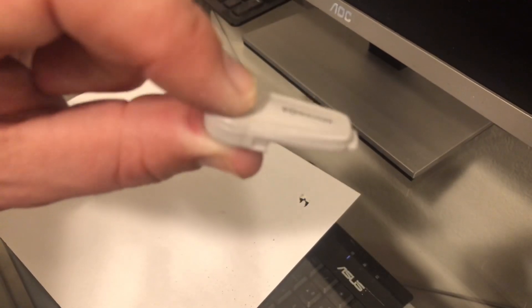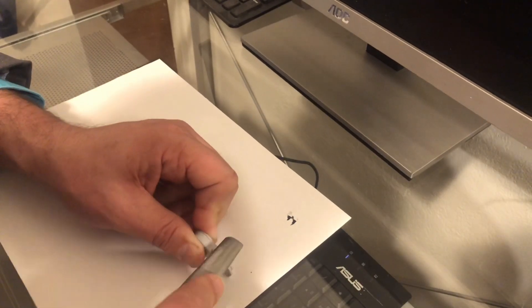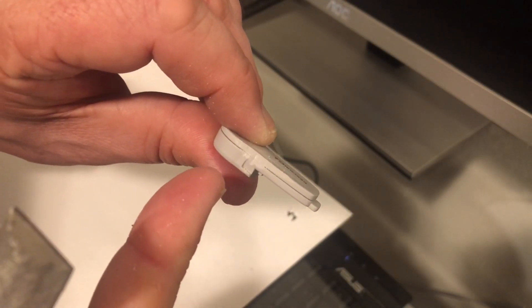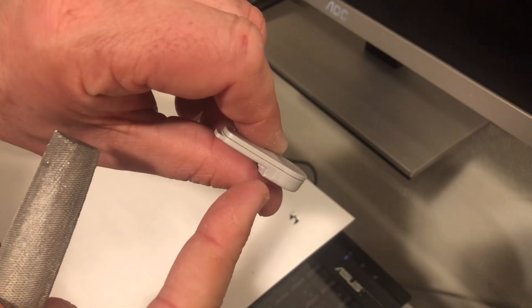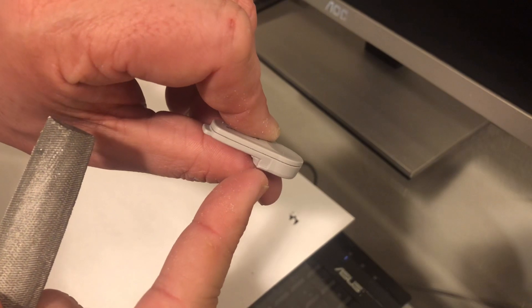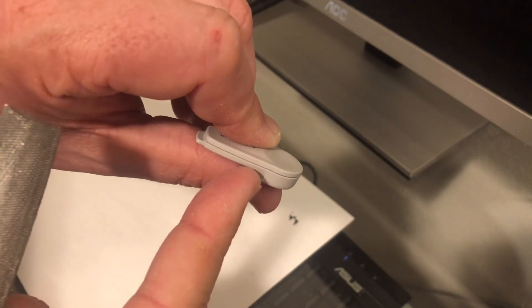See if you just barely rounded off the top there. This would be much easier with a slightly smaller file. Just notch that a little bit so that the toothpick can fit in to release that clip from the transmitter. Now do the same thing on the other side, and keep in mind you'll want to be very careful not to file away this little notch. If you do, your transmitter will not be held in place the next time you try to use it, so be real careful not to ruin it — just file the very top.